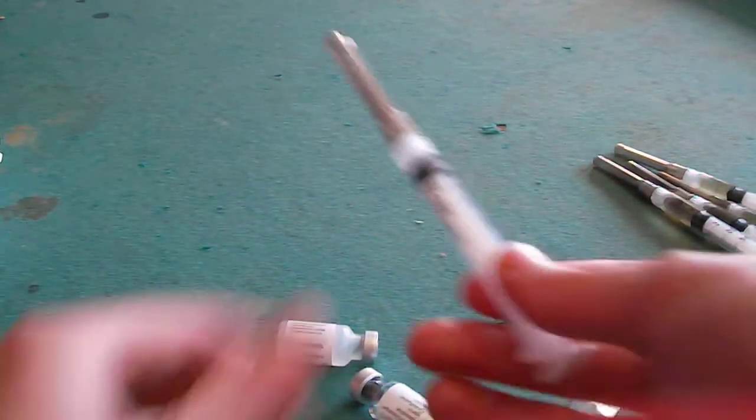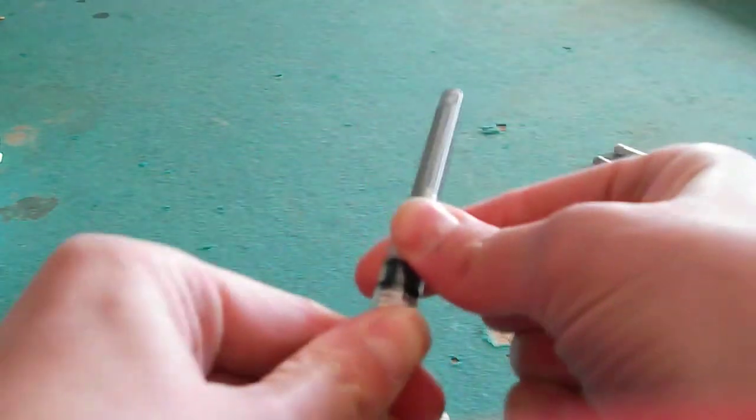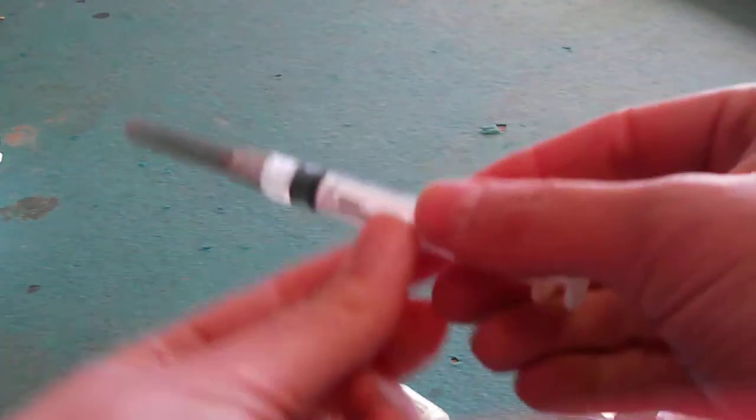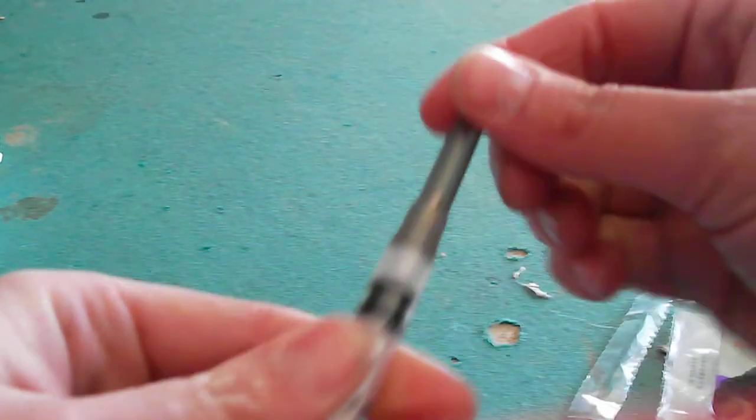Take it out. Make sure you twist the cap on tighter so when you administer the shot there's no possibility that it pops back off. Just give it a little twist. Make sure it's tight.